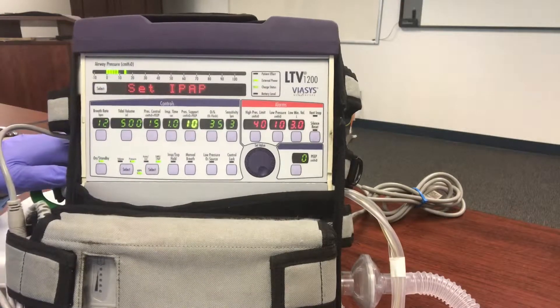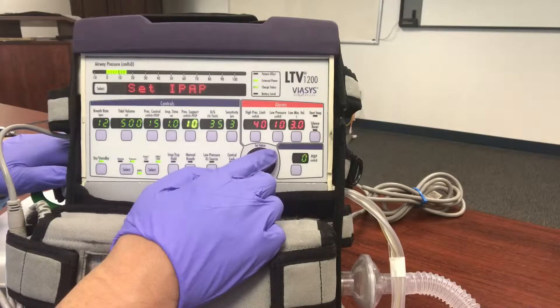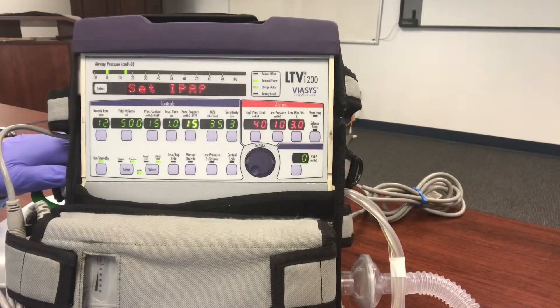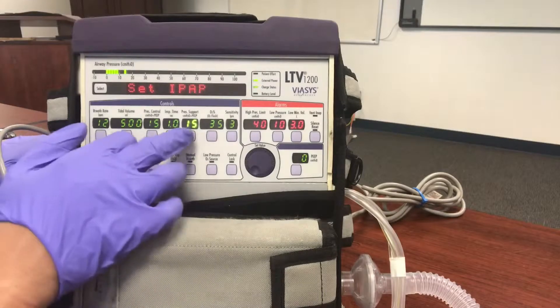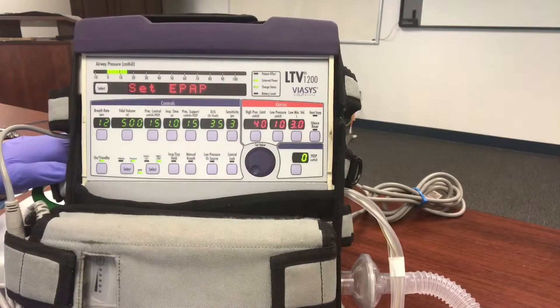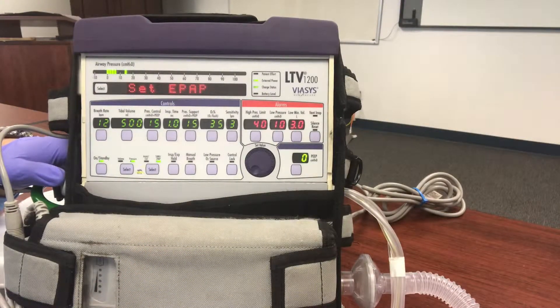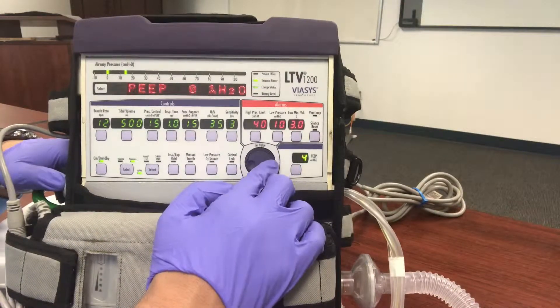Now we have our first parameter to set: IPAP. This will light up and let you adjust. Let's say we want to set an IPAP of 15. IPAP is our inspiratory positive airway pressure — it does the ventilating. Hit that and it'll flip to EPAP. EPAP is the same as PEEP — expiratory positive airway pressure, which keeps the airways open. Let's set that to 5.